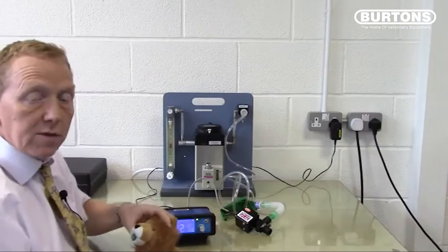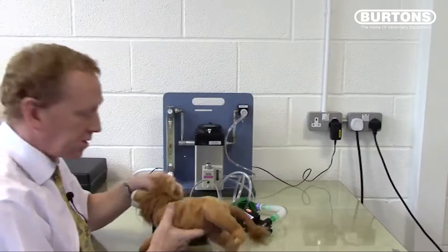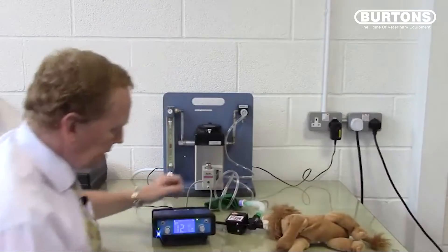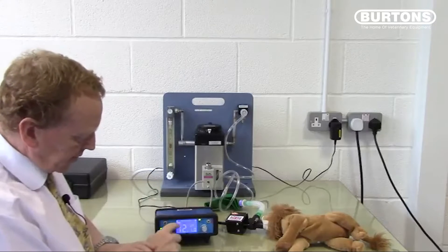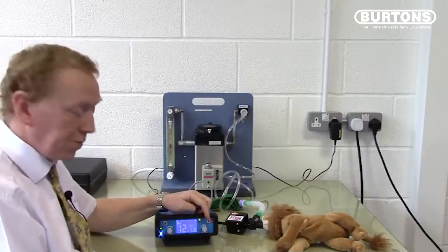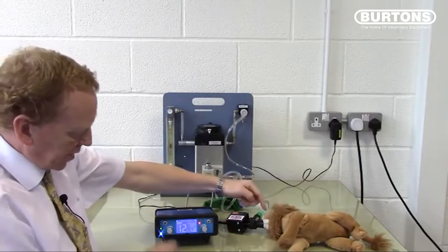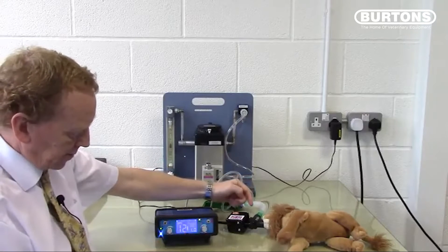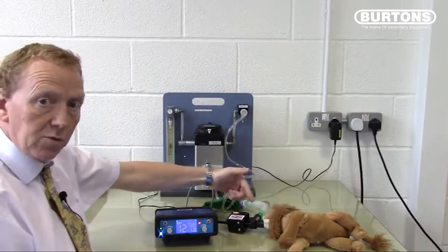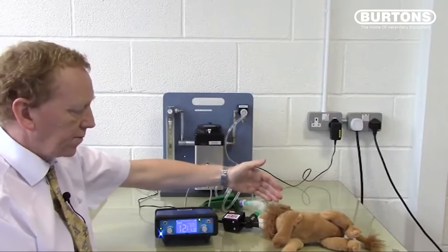Here is a demonstration using Leo the model. With our patient connected and target pressure set to 12, ventilation is currently off. With the incoming gas flow at a normal T-piece flow rate, we simply push the valve to ventilate. The incoming gas starts to inflate the chest and the airway pressure is seen to rise on the bar graph on the screen. When it reaches the value of 12, the valve opens and Leo breathes out normally — inspiration, expiration, inspiration, expiration.